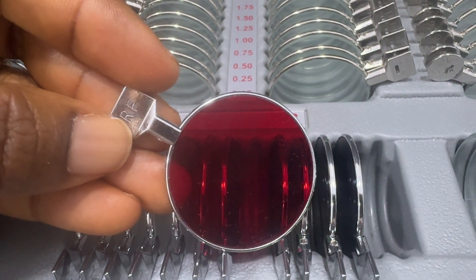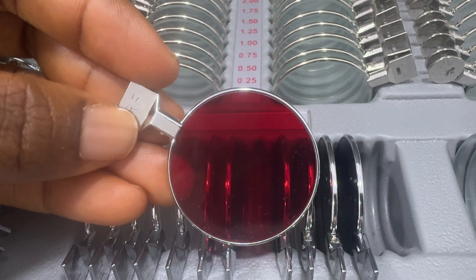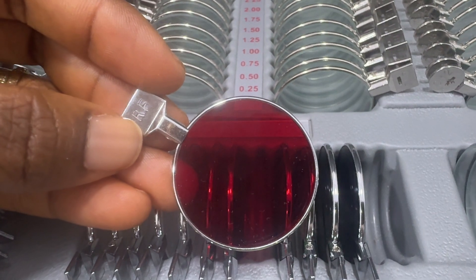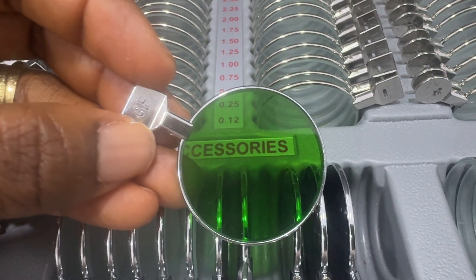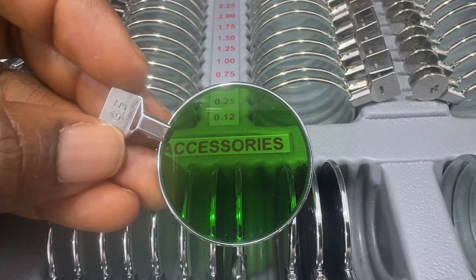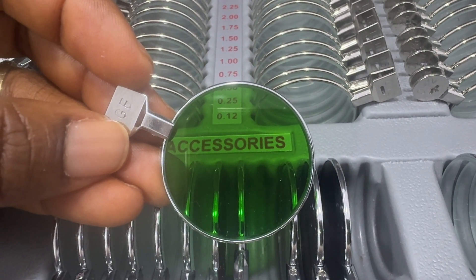The red lens or red filter is used in binocular vision tests. It can also be used to check over-correction and under-correction of refractive error. The green filter also performs the same function. The red and green lenses are also used to perform the Worth 4-dot test.